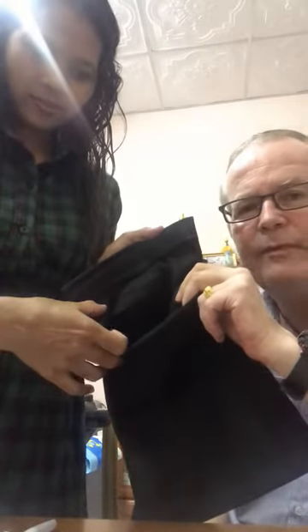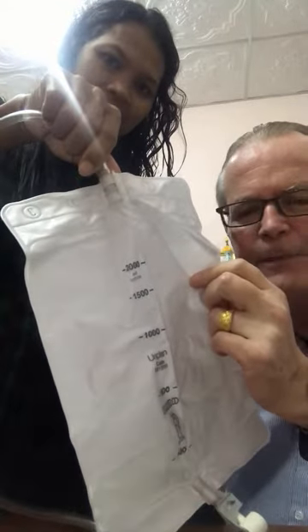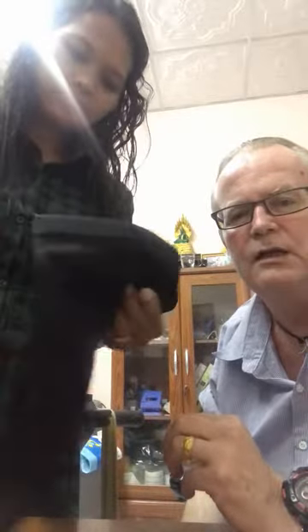So we'll get May now to put a 2000 milliliter catheter bag into the catheter bag cover. We've made it to the size that it fits perfectly — a 2000 milliliter catheter bag — because we want the bag not to be too big. Of course you can choose larger size catheter bags, but there you'll see that May has put that into the bag and it fits perfectly.